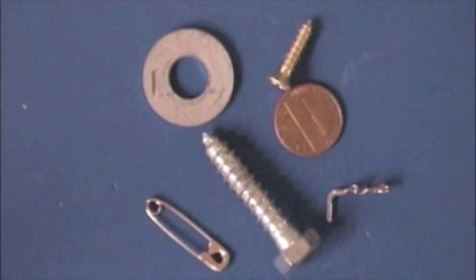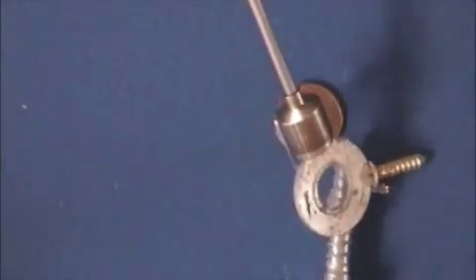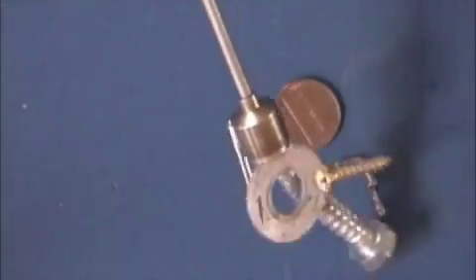One of the challenges in the MR environment is determining what metals are safe to go near the scanner. It's difficult visually to make that assessment since many metals look alike and yet have different compositions.